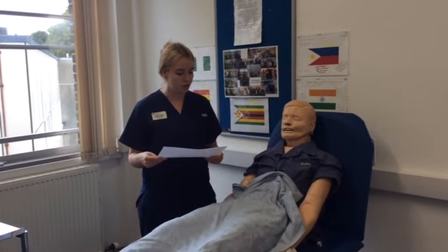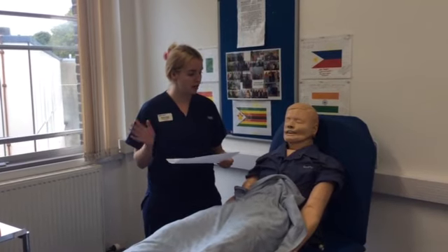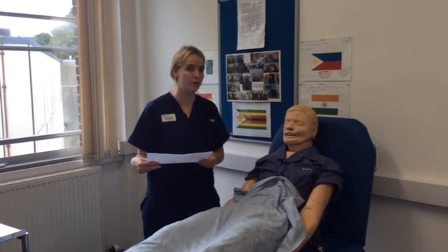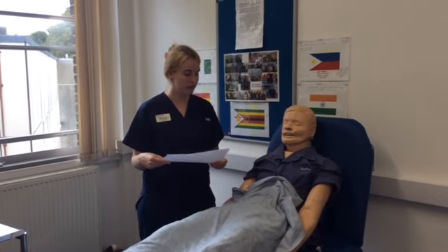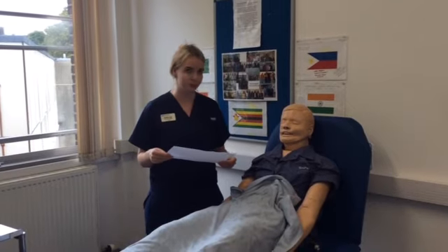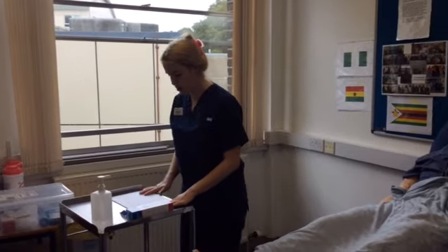Okay. So what I'll do, James, is I'm going to go and get my things ready, and I'll come back to you and explain how to use the inhaler. You haven't taken one before, have you? No, I'm a newly diagnosed asthmatic. I've never had an inhaler before. I don't know how to do it. That's fine. What I'll do is I'll prepare my things and I'll talk you through how to do it. Okay, thank you. Okay. So now I'm going to prepare my equipment.